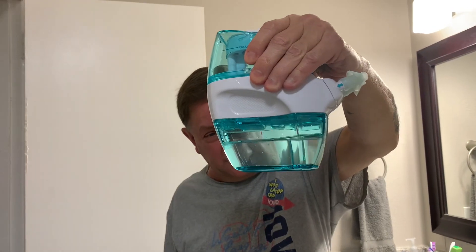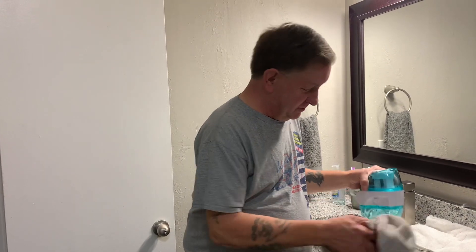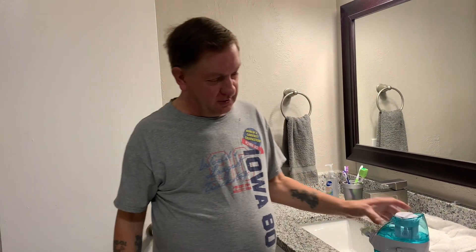Now as you can see after doing a cleaning, all the nasty stuff that's in there — that's all from your sinuses. Mine used to be totally 100% blocked and now it's at least open; I get a good flow through it. In my opinion this thing is a great invention. It is a great product for somebody with bad sinuses to use — it keeps your sinuses nice and lubricated and refreshed.